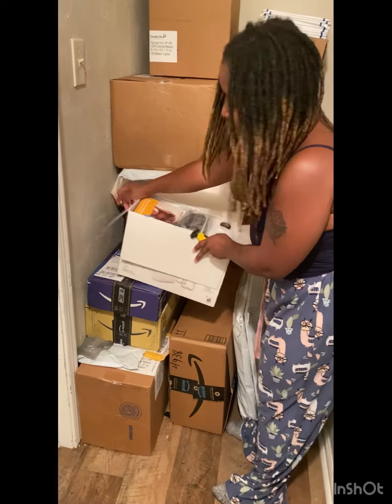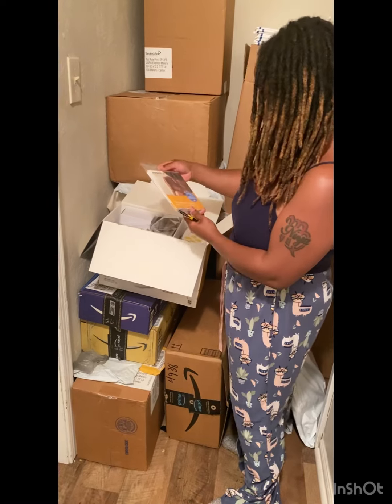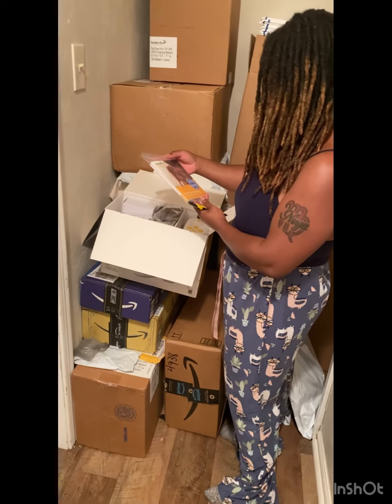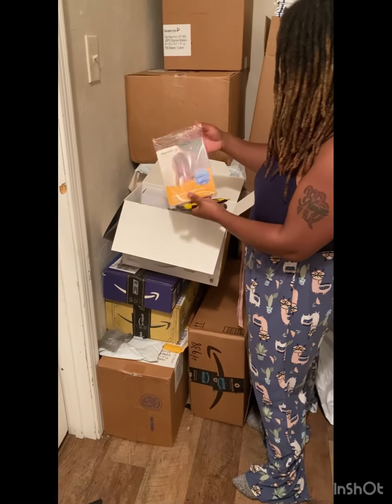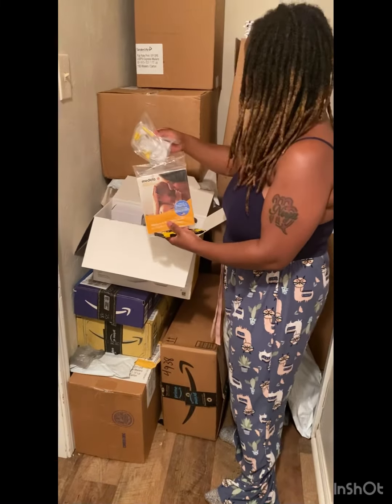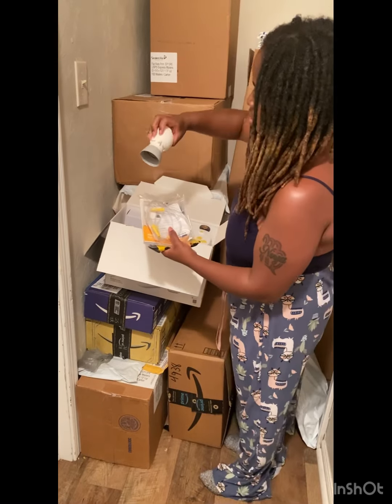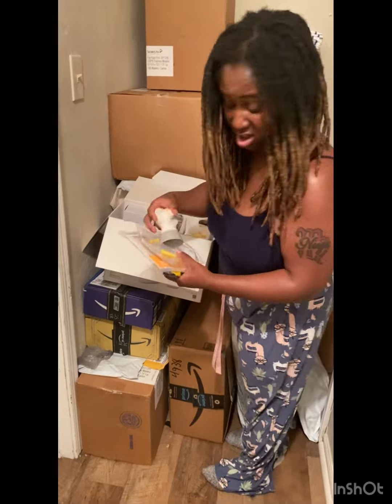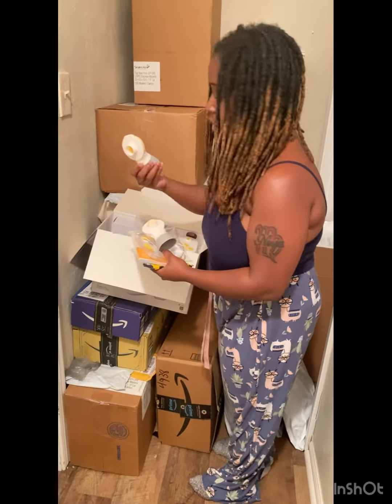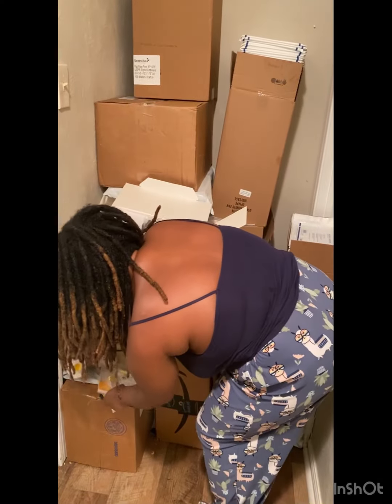A Medela, okay. I'm hooking a sister up. Welcome to the Medela family. So this is like a little book — okay, this is a book. Oh, look at the little tubing. This is the little pump thing, and this is the other pump thing. I don't know what it's called. It's like a little pump thing.